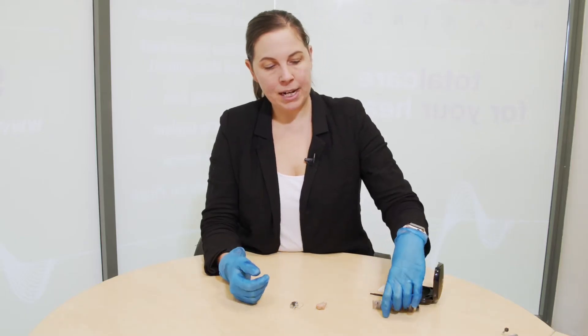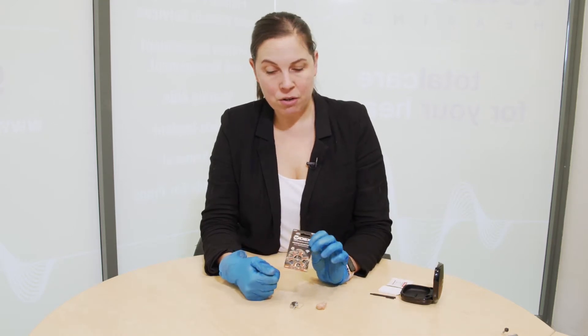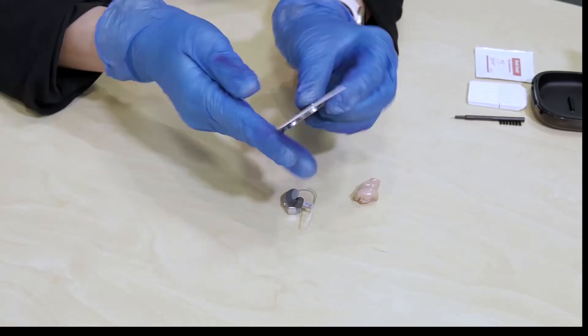First things first would be to change and put a new battery in. So you get the battery size that is the size you would use for your hearing aids. Get a new battery out.